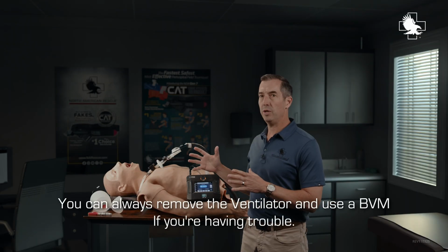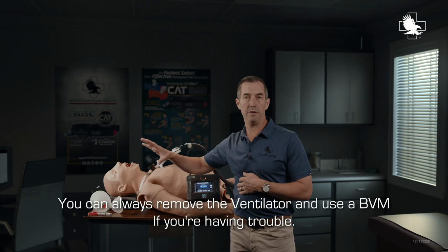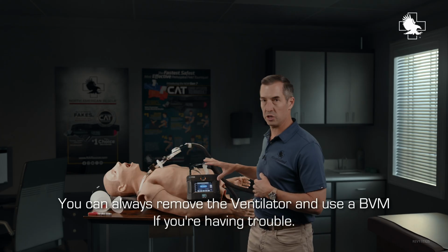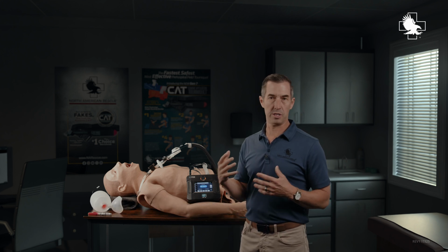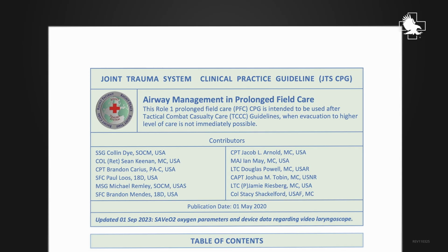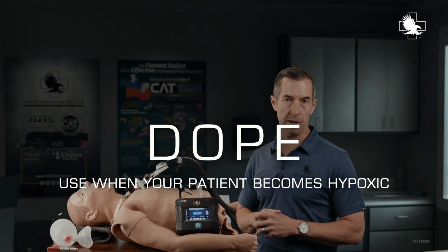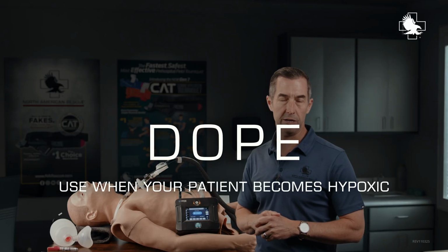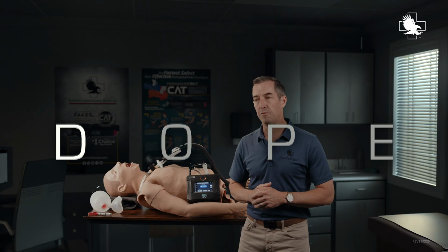Remember, you can always remove the ventilator, unplug it, and manually ventilate the patient if you're having trouble with the ventilator, you're not getting the settings right, or there's some kind of a concern going on until you get a new ventilator. A lot of people use the DOPE mnemonic. That's also on the JTS CPG. It's a very handy mnemonic if your patient gets hypoxic when they're being ventilated, of steps to take to clear any trouble problems. So what does DOPE stand for?